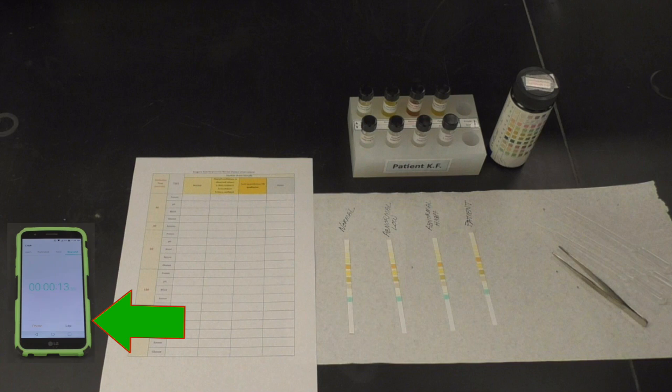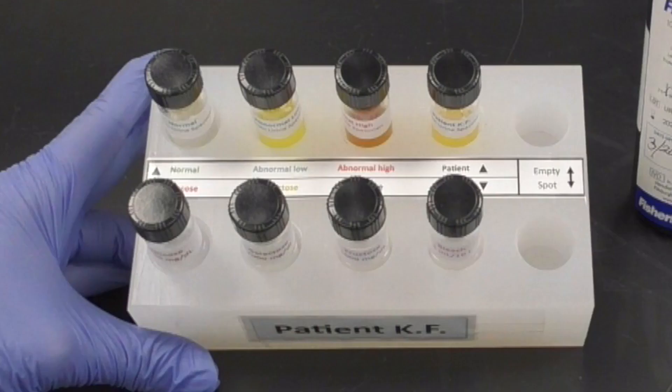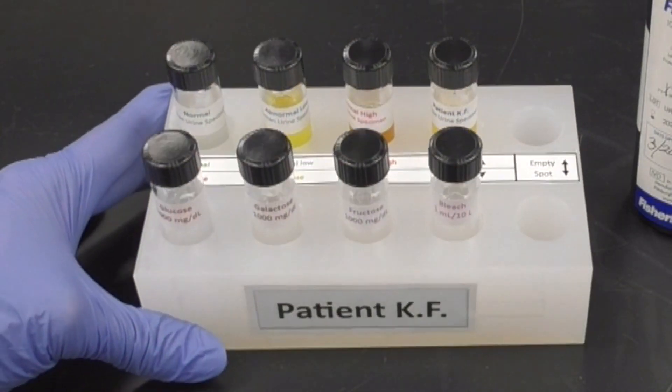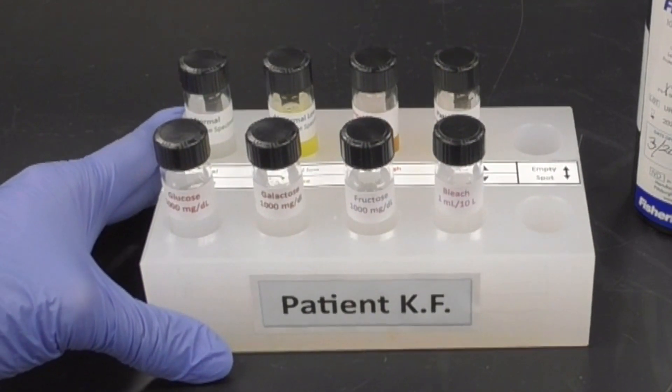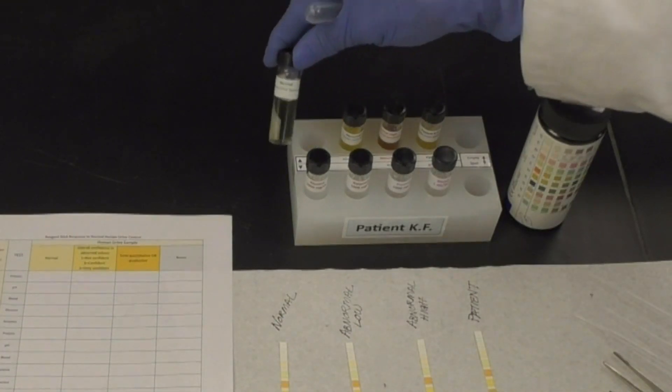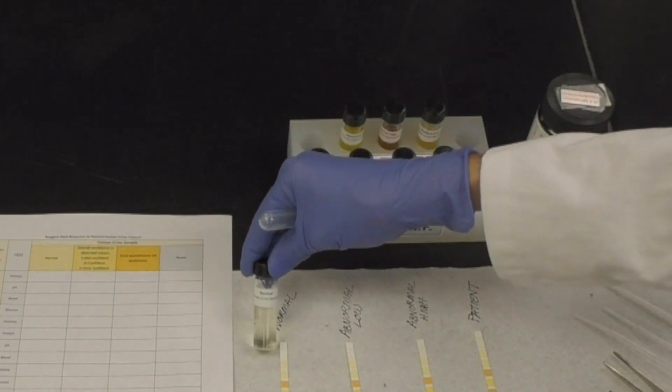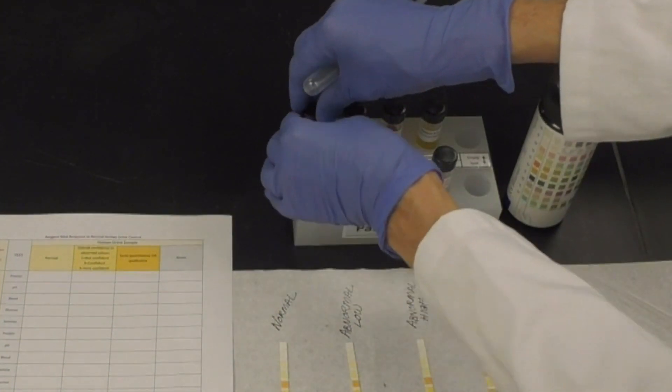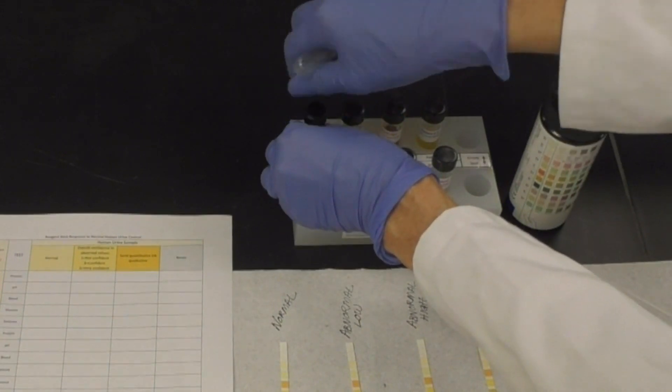During the patient project, you will receive the reagents needed in a block with your patient's initials on it. Always double check the labels on the items in the block before using them. Sometimes there will be numerous reagents and using the correct ones is very important for correct results.